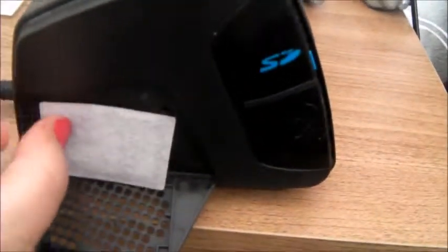So this is the new one, so I'll just show you how to take the old one out. Here's my machine. So you open this door like that. There's the old filter, so you throw that away, and you put the new one in, like that.